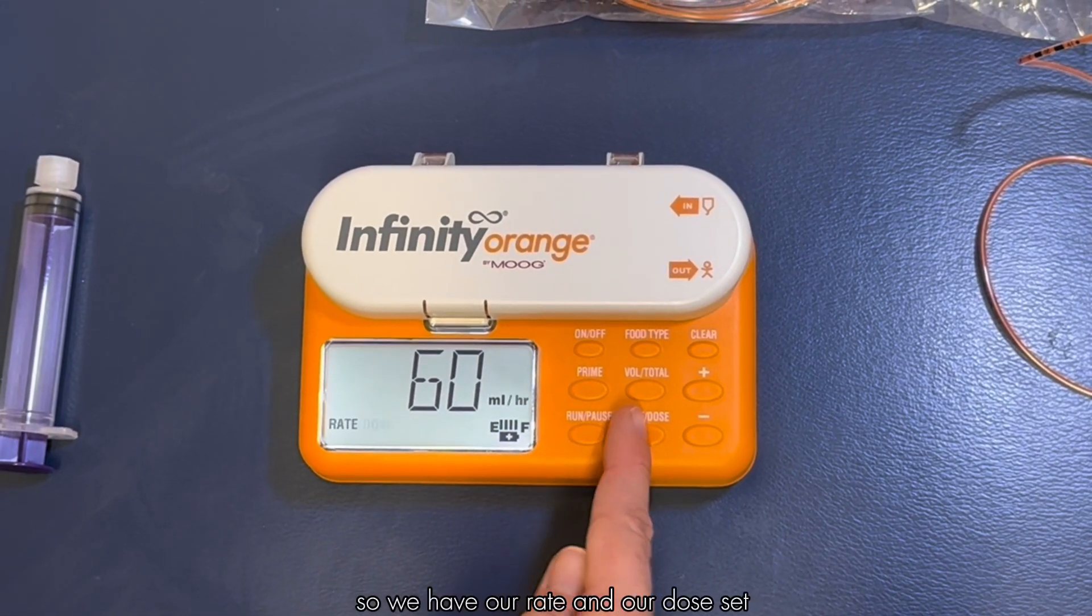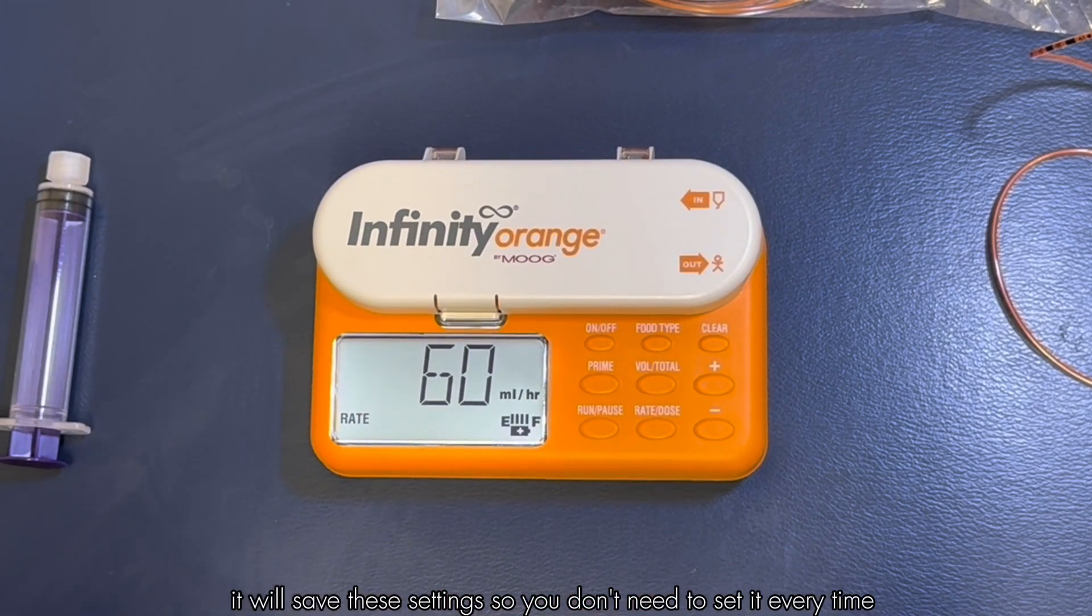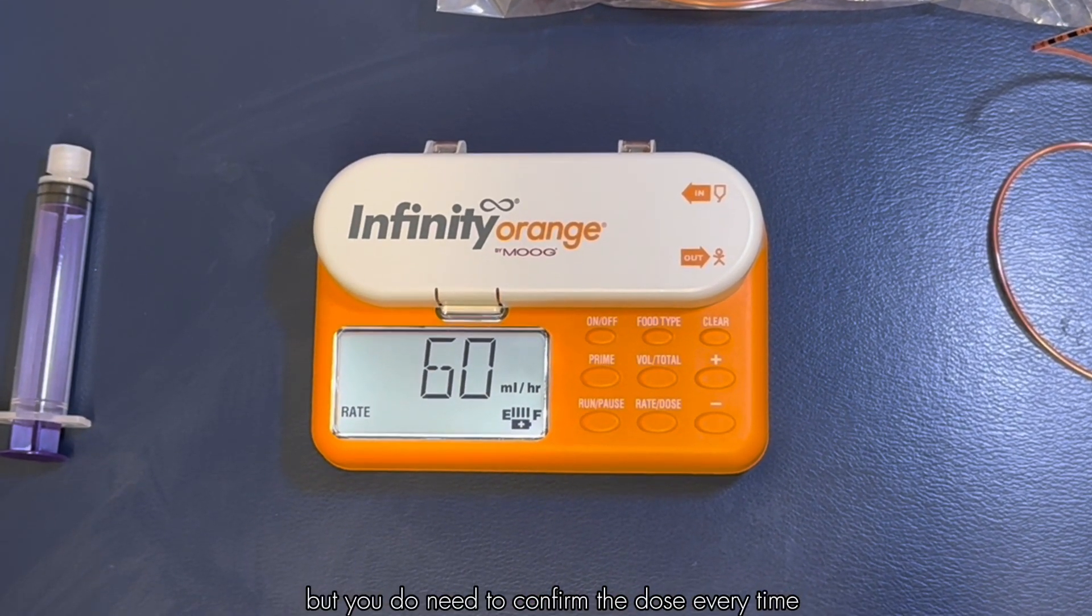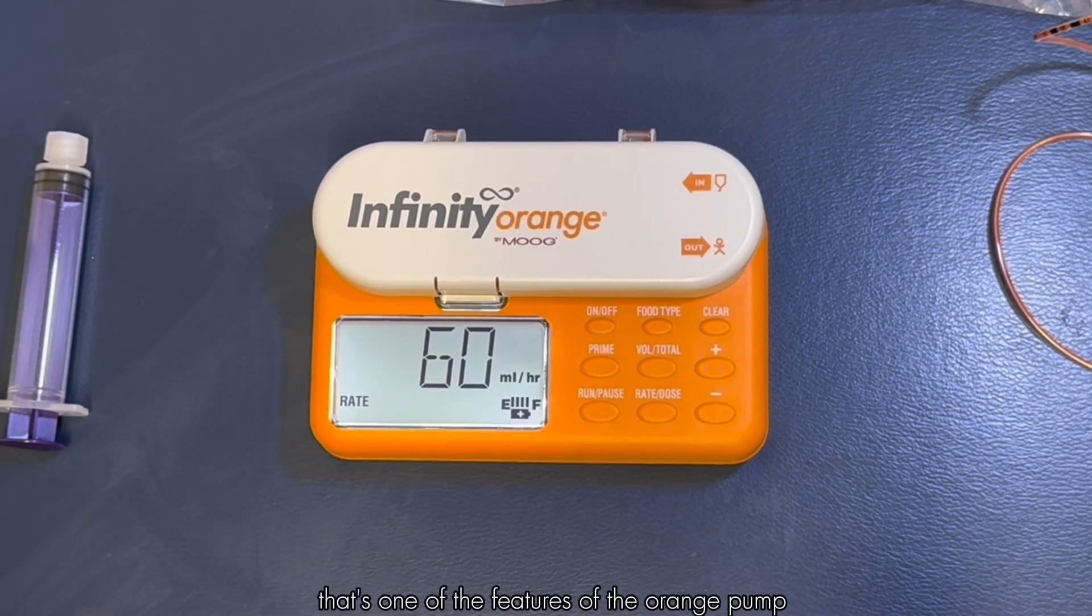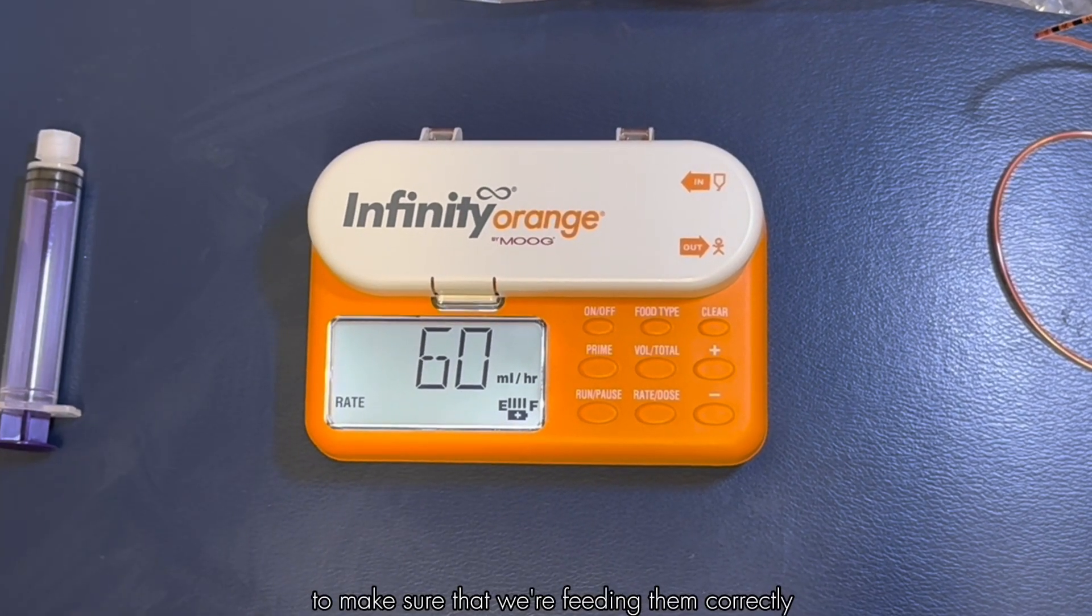We have our rate and our dose set. It will save these settings so you don't need to set it every time, but you do need to confirm the dose every time. That's one of the features of the orange pump to make sure that we're feeding them correctly.